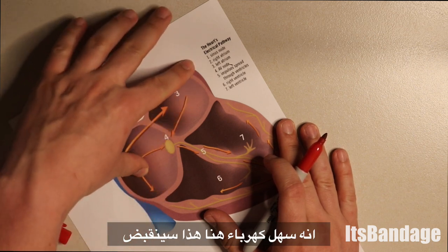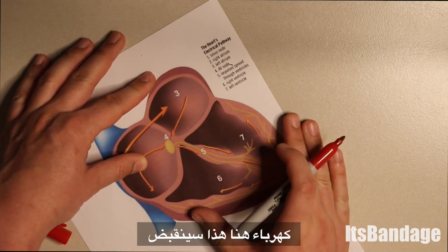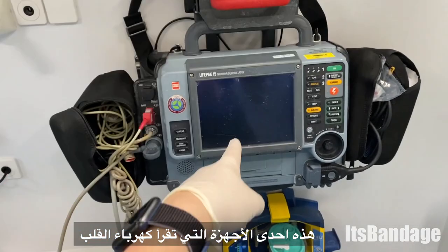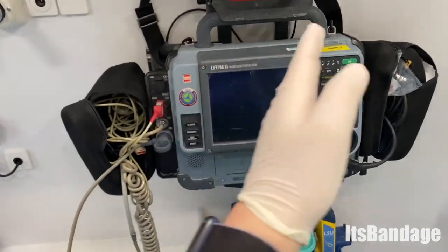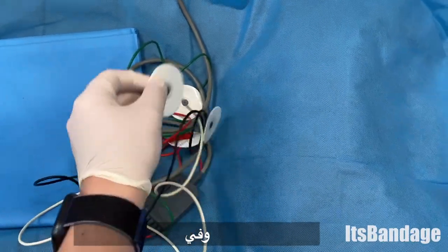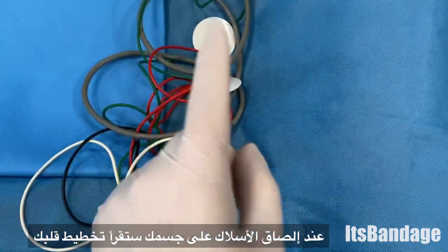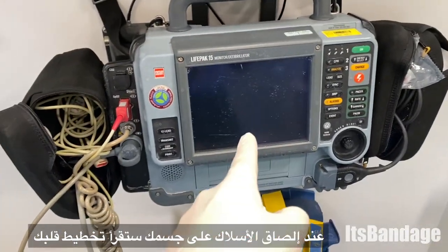Electricity here — this is going to pump. Electricity here — this is going to pump. So this is one of the devices that measures the electricity in your heart, or in other words, an ECG — electrocardiogram. Out of these devices, you're going to see cables, and on the end of the cables there are stickers. You stick these stickers on your body and you measure your ECG.